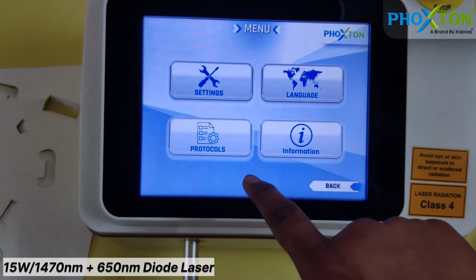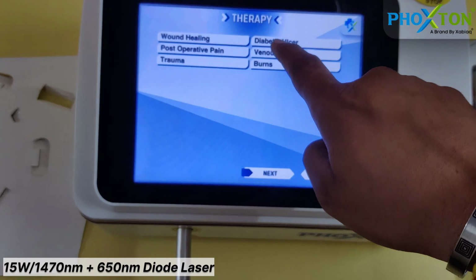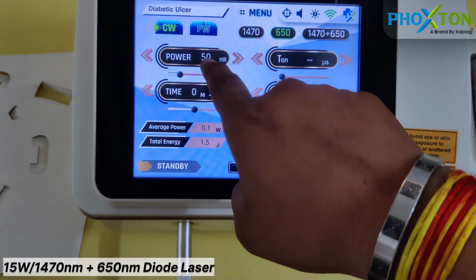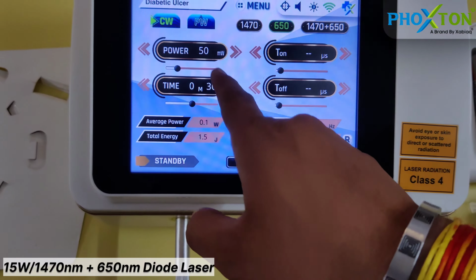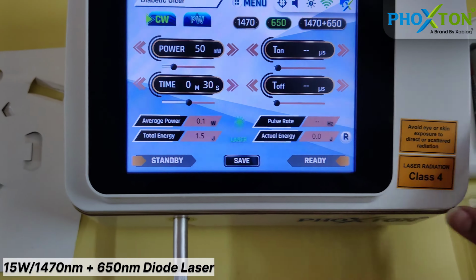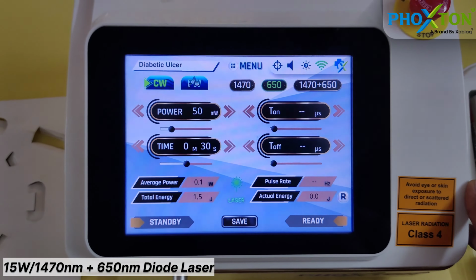Go on menu, go on protocols and therapy. Whenever you are doing any diabetic ulcer, it will go to the 650 wavelength automatically. We are giving 50 milliwatt power to that diabetic ulcer and we will be firing the laser for 30 seconds. So we will be giving 1.5 joule in the diabetic wound. So here is how the setting is done.